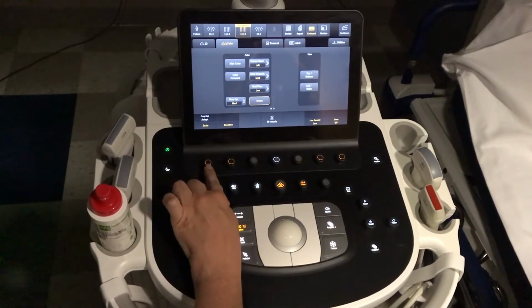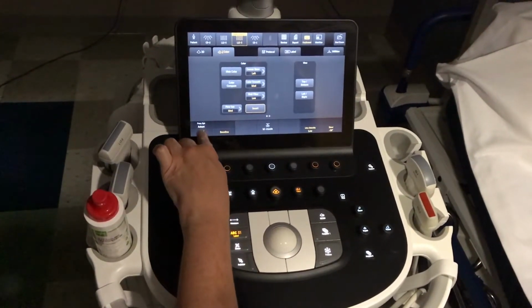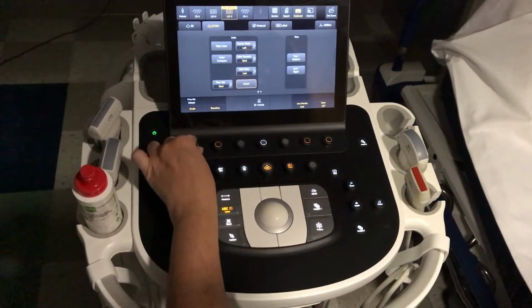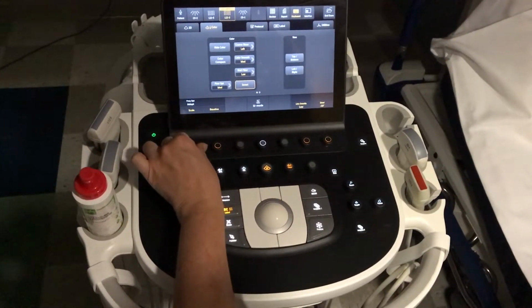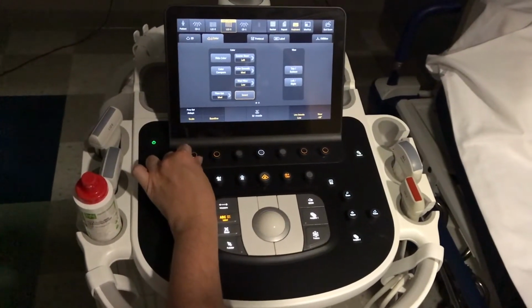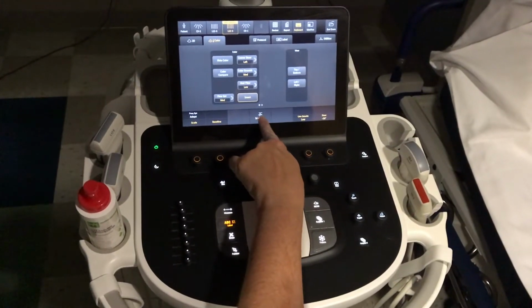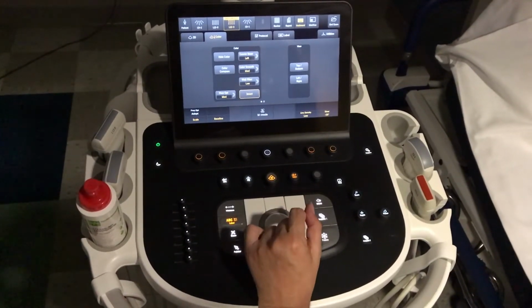And the scale to the color is this knob at this time, and this screen is telling you what that knob will do. So this is the scale that is set here. And you can decrease your scale by going counterclockwise or increase your scale if you're in a high flow situation by going clockwise. If you wanted M mode, you select it here. It will generally also come up even in grayscale in the OB setting.